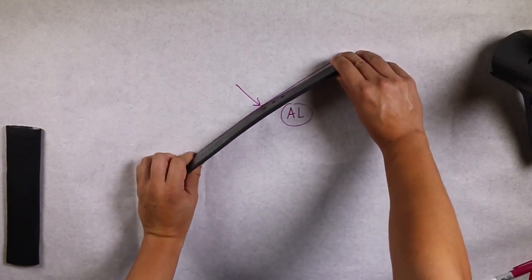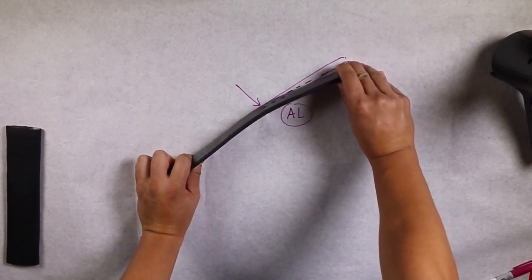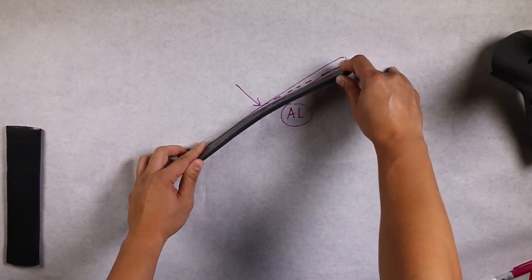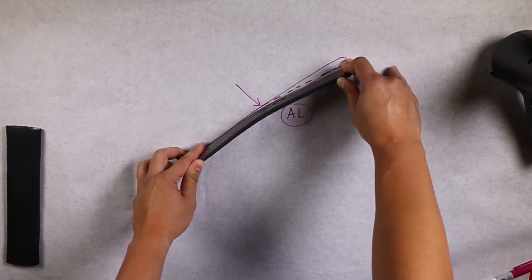As the strut cools, the shape will recoil, so use gloves to retain the shape in the finished desired position.